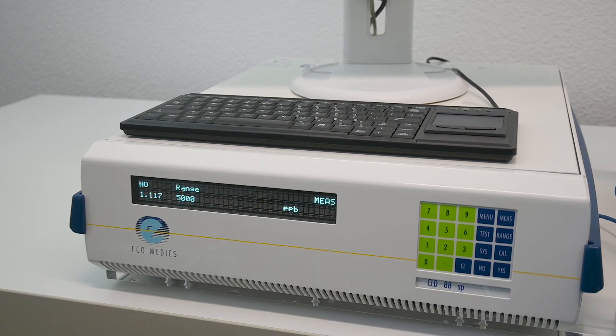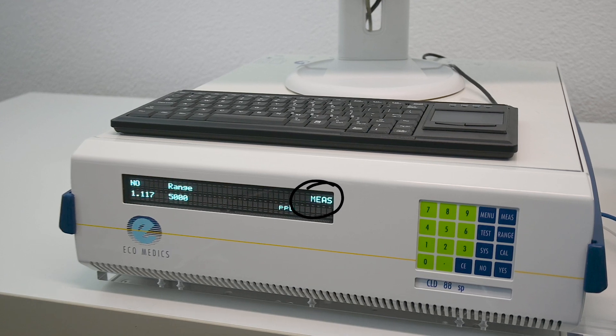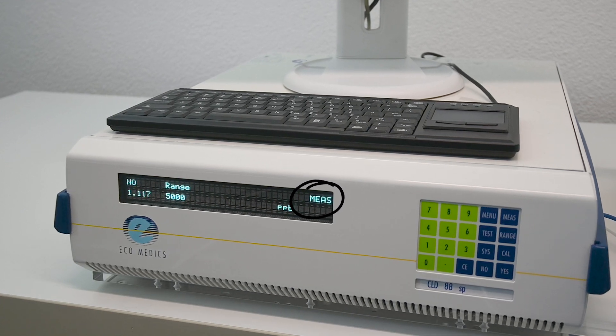The analyzer should be up and running and show ready for measurement on the display. Warm-up of the device takes approximately 20 minutes.